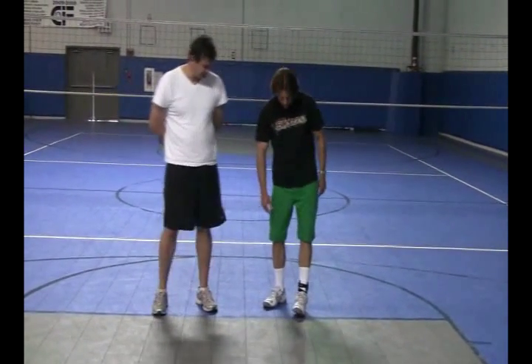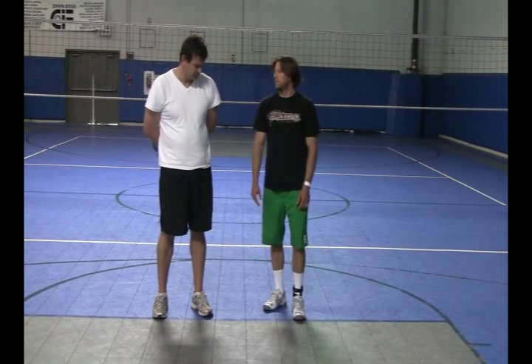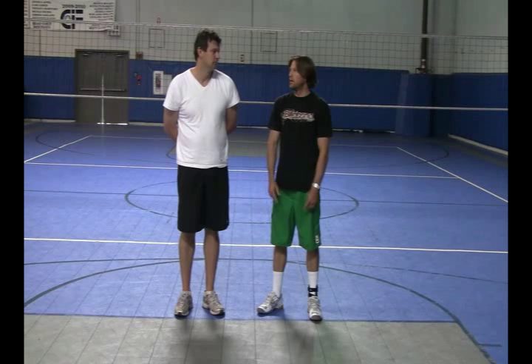You want to try and just feel how it feels? Yeah, I can't go either way too far. So there's a lot of support. Yeah, it's kind of like the T2 from Active Ankle but smaller, lighter, and more specific to the orthos.